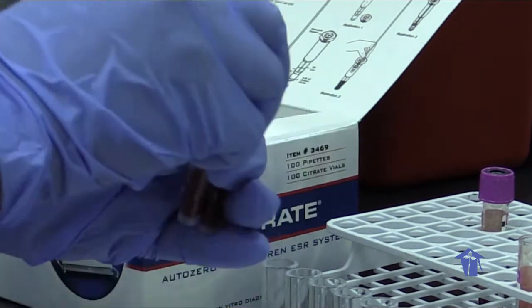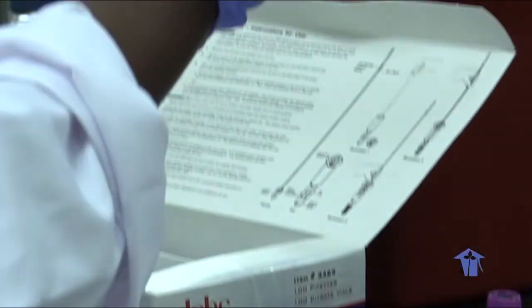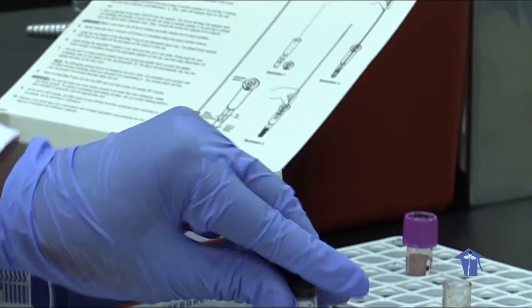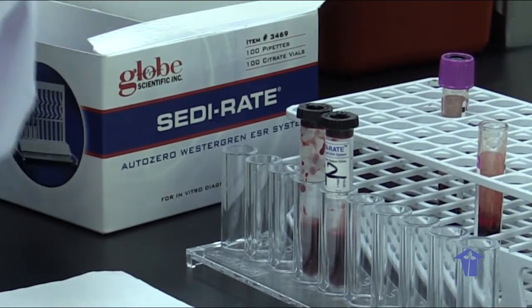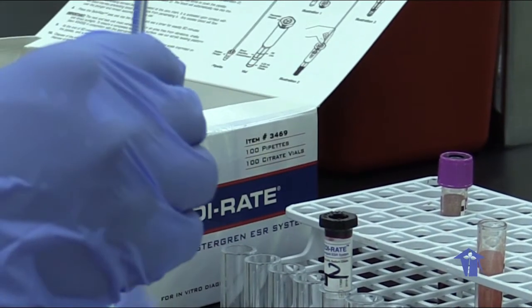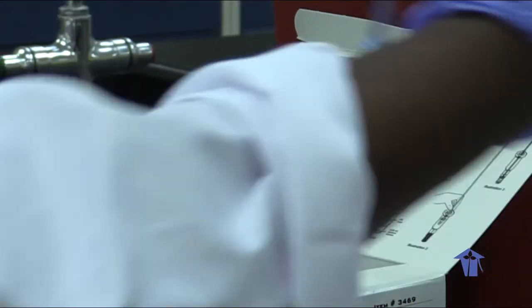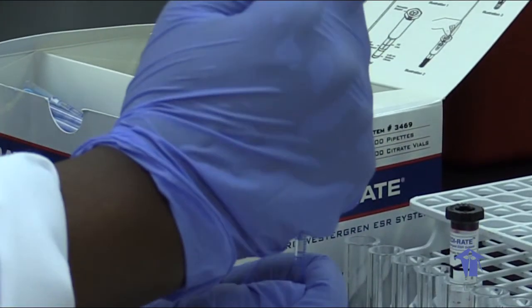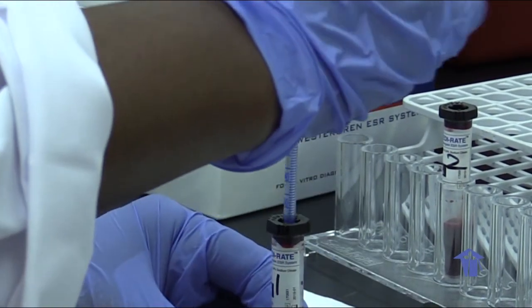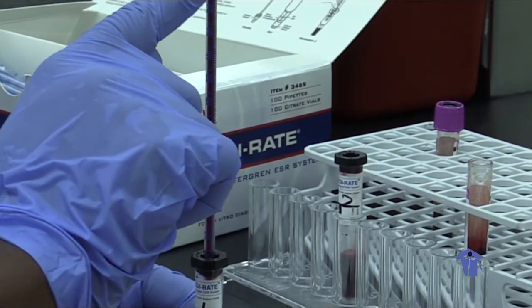It's important to gently tap our tubes on the bench to get rid of any blood that is stuck up inside the caps. Then we place our measuring device. Hold one sample firmly on the bench in one hand and our measuring device in the next. Firmly grip the sample while placing the device down slowly until it reaches the 0 mark.